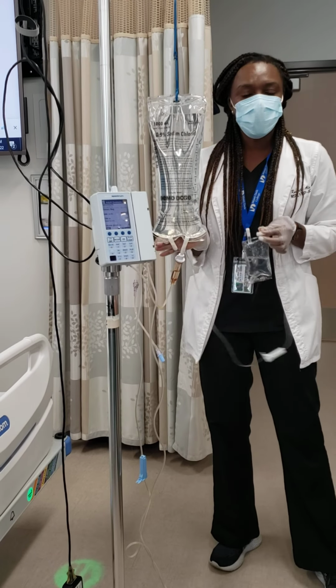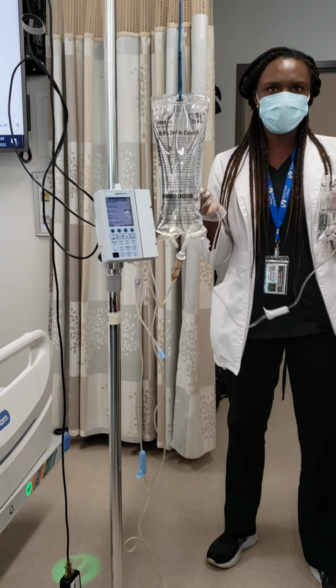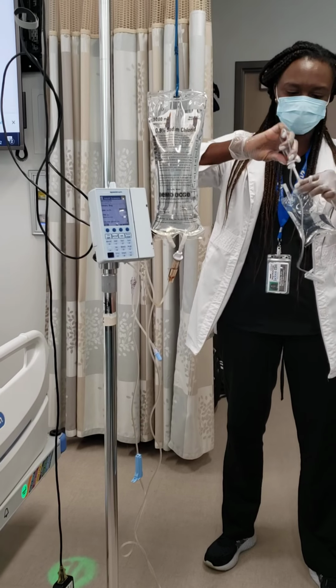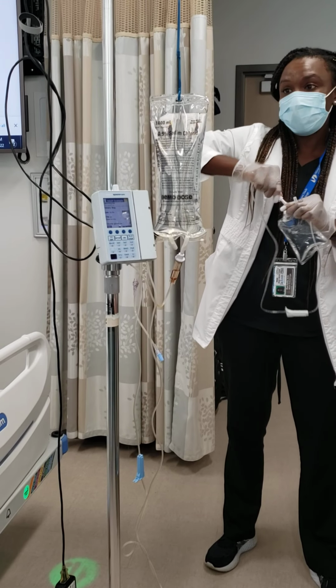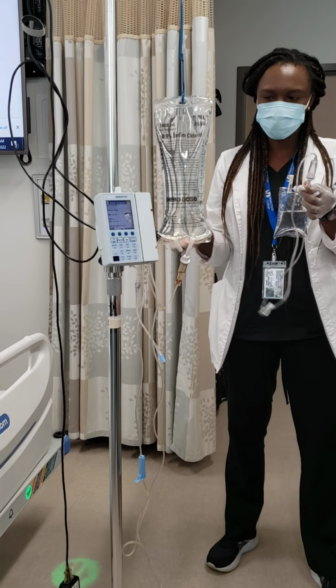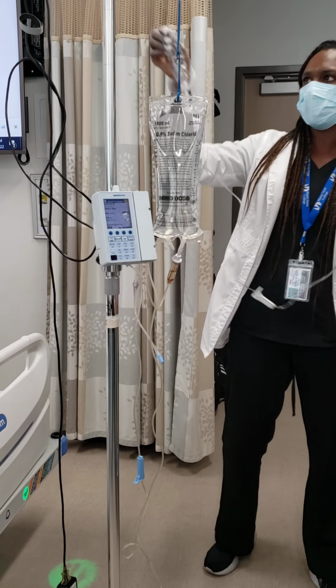Okay, there is another way that you can also prime it. I normally do it this way too. You'll find some nurses do it, and as you saw in the video, they use it. They go like that, so we can just go like this too. I like to do it this way too, just hang it and then stack it like that. It makes it easier, less weight in my hands, and that's okay, right? So it's already clamped, so now I can turn it around.